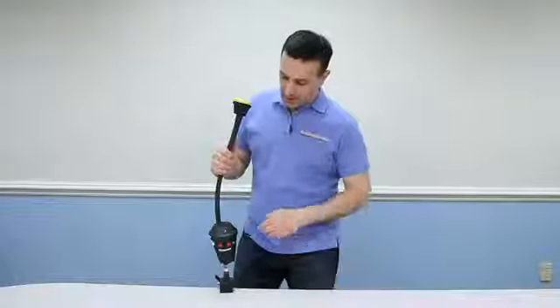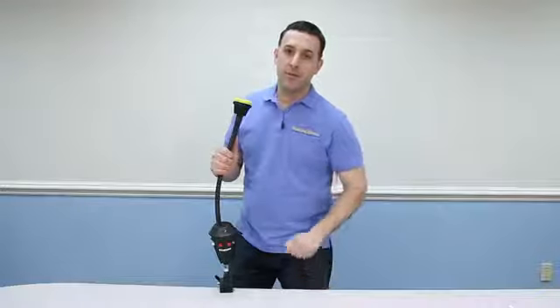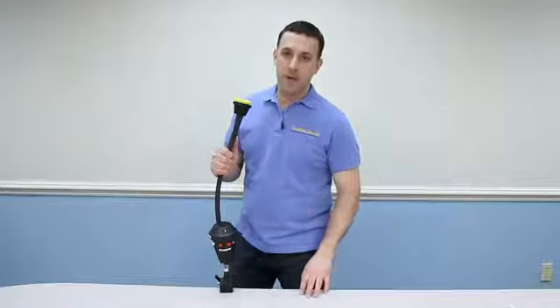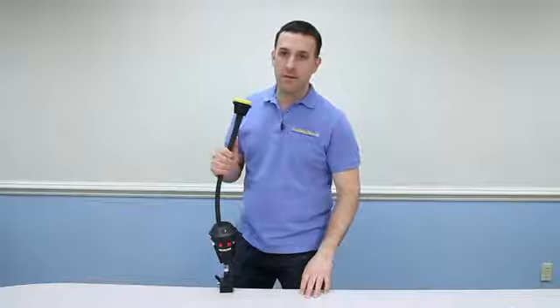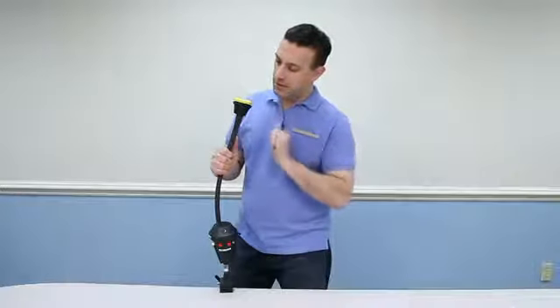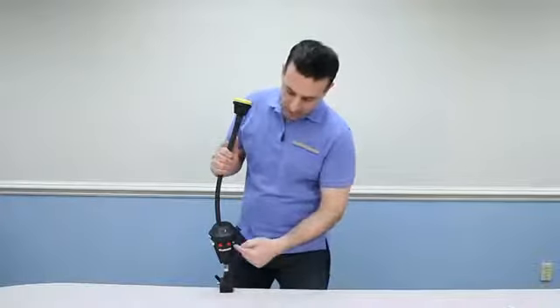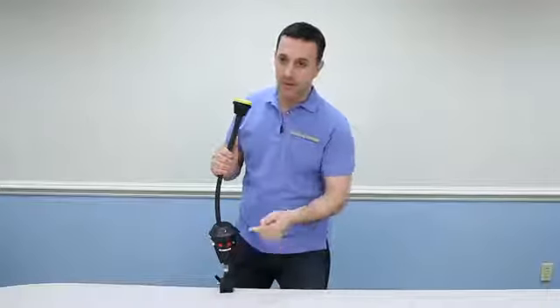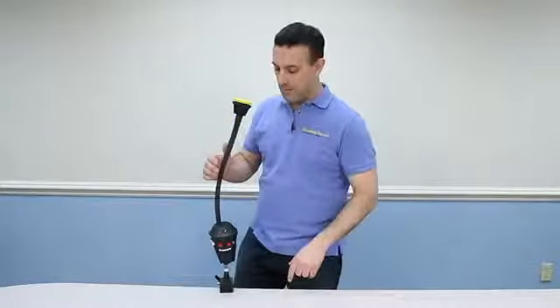That's the announcer with six levels on a gooseneck. The announcer with six levels will allow a user to access six different levels of communication and different messages with just the use of one button. There's a built-in button here or they can plug their own, a different type of switch if this is not suitable. Let me just demonstrate.